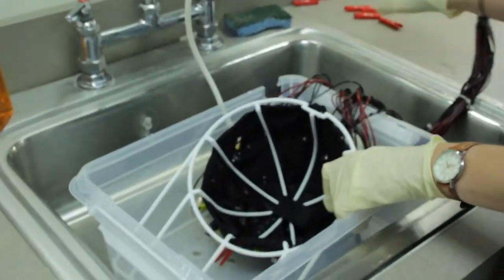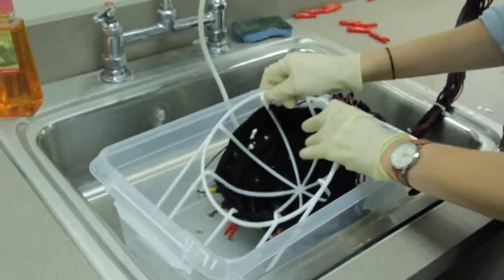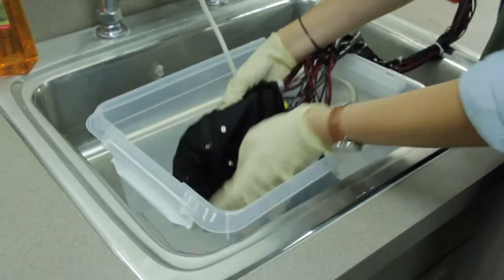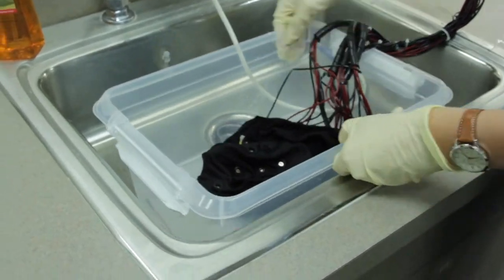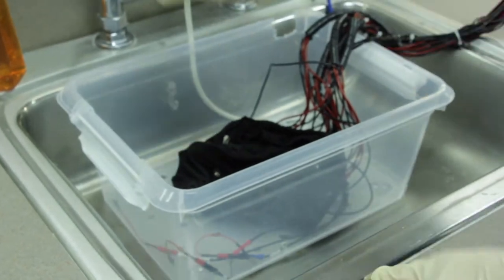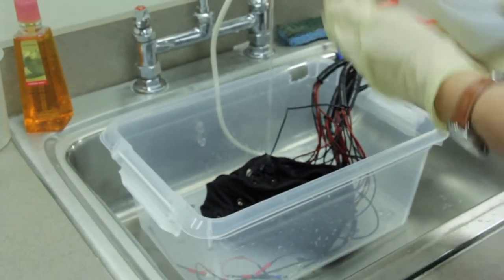Remove the clips and the plastic frame to leave the cap in the wash tub with the electrodes face up. Plug the sink and place a small drop of ivory soap in the sink under the running water. Run the sink until it fills up with about 1 inch of water.